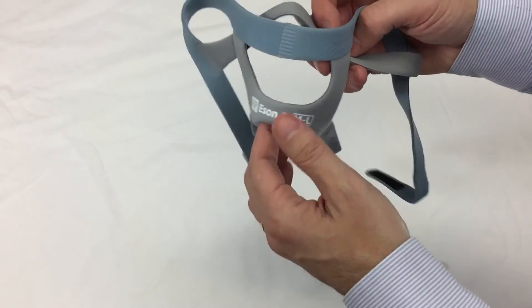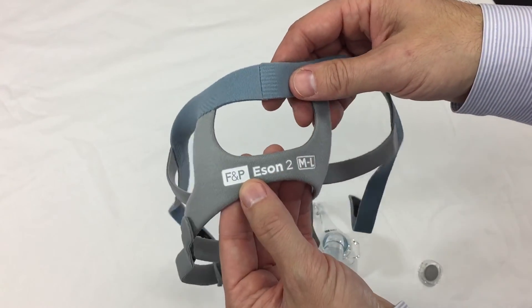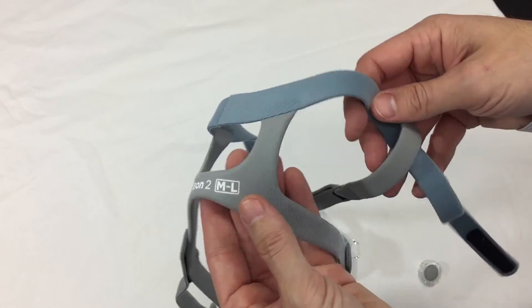And the headgear itself, again, very soft material. Stretchy. Almost has like a silky feel to it.